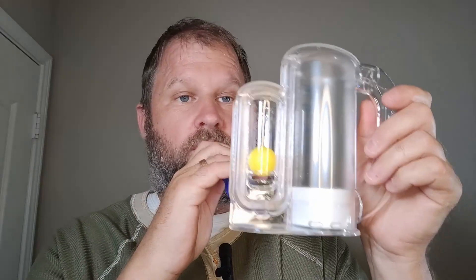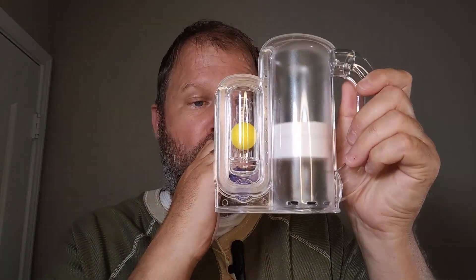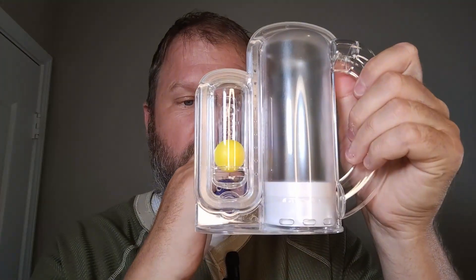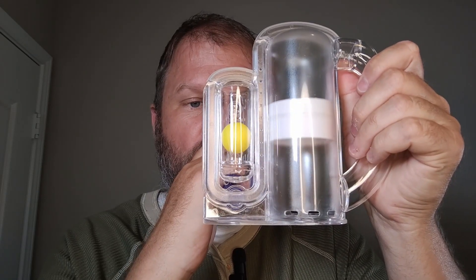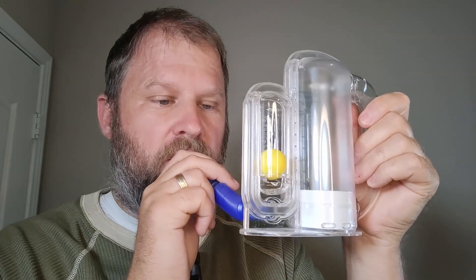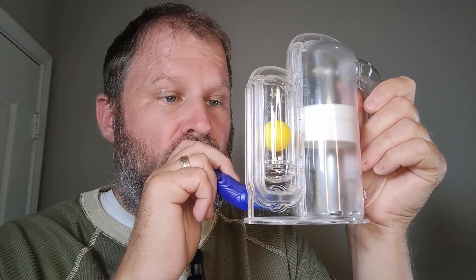So let's give it a shot, let's see how I do. And then let go. Okay, so I'm going to breathe out all the way, let's try it again. That is kind of more tricky than you'd think, but I think I did a pretty good job keeping it up at the top. Let's do another one. Breathe out all the way. So you want to keep a nice, slow, steady breath on it.